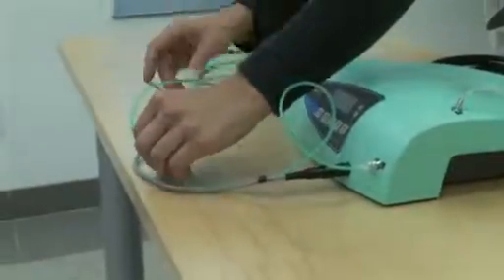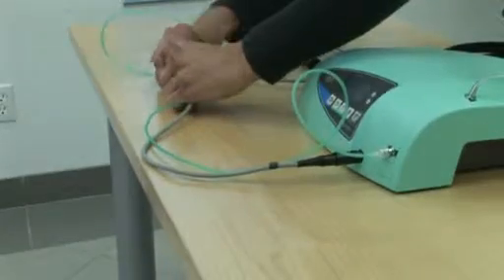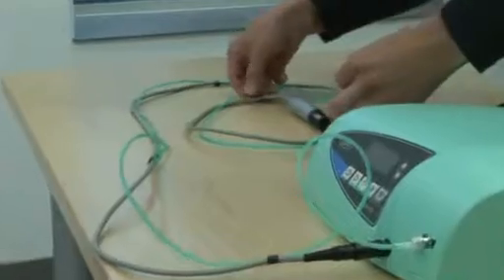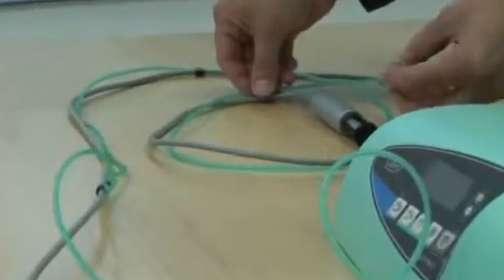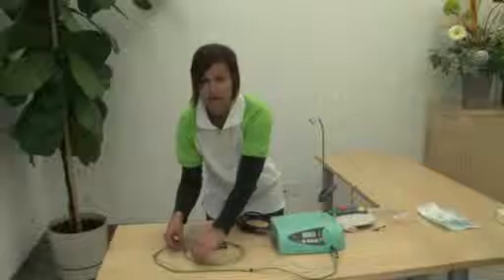That way we can still make sure that the compartment is free to open clearly. Then run the green tubing down the cable, attaching to each tube clamp. Before we attach the handpiece, we will leave this clip unattached so that the doctor can choose which slack he would prefer to leave on this end.